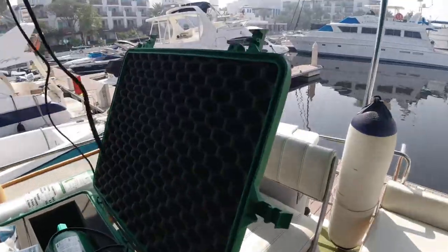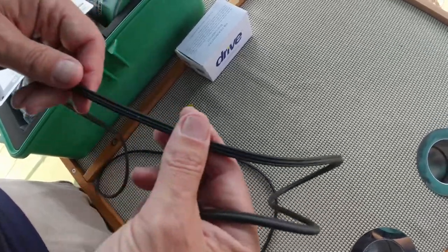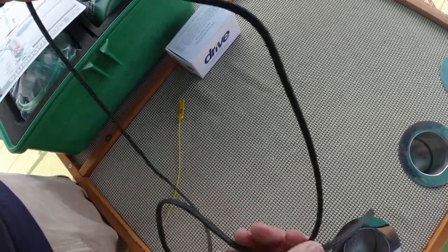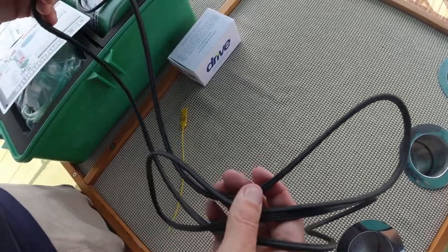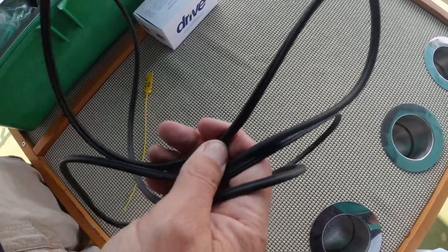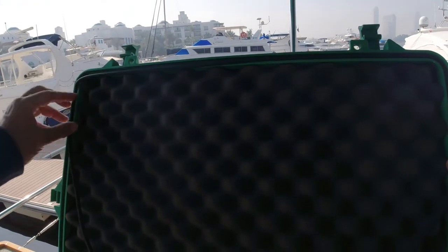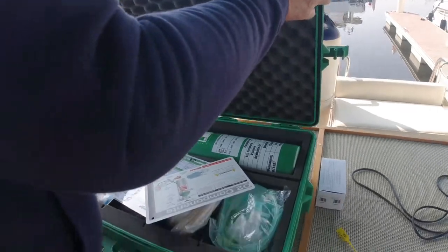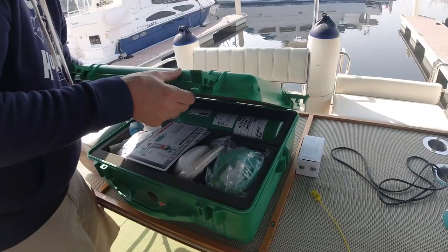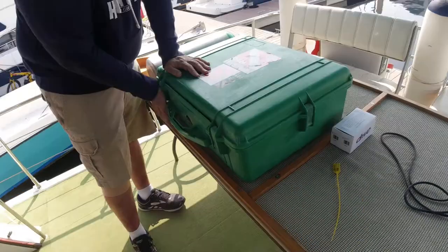All we need to do now is replace the seal. We tested it before and it was okay, but we've got the new one from the service kit so let's get it changed — then we don't have to worry about it for a year or two. If you get the annual service kit from DAN, the one with the seal costs very little extra. These can be a bit tricky when new because they can fall out, so just hold it in place at the bottom when closing the box for the first time.